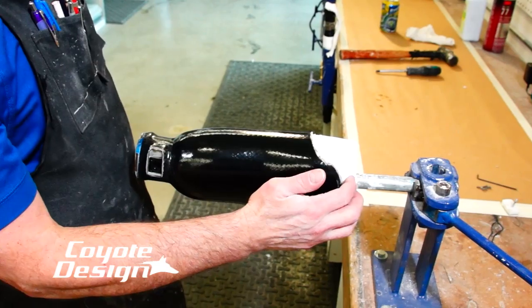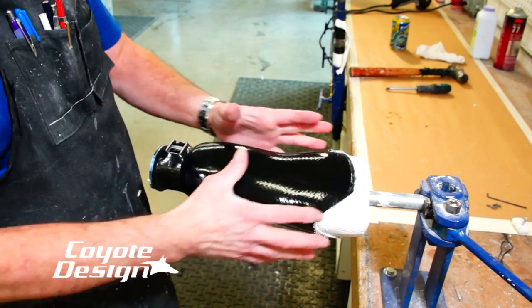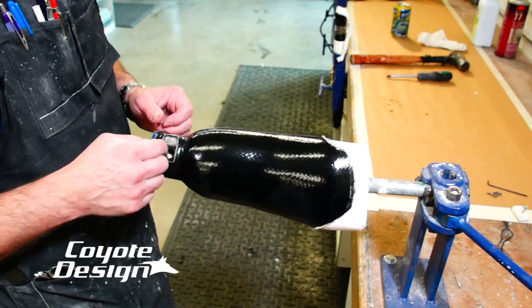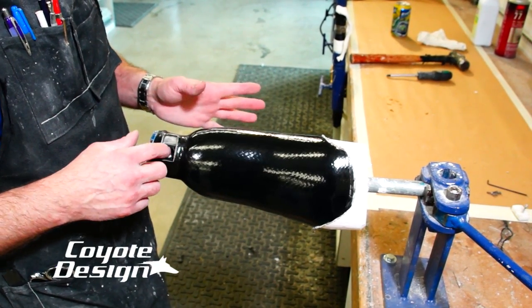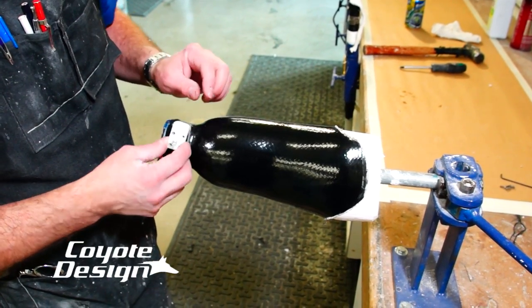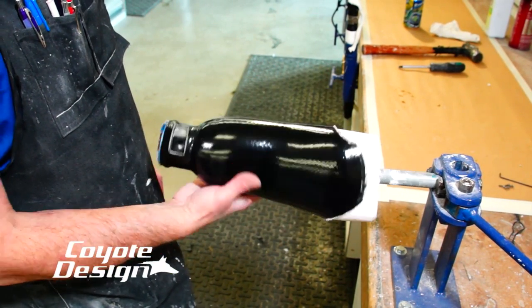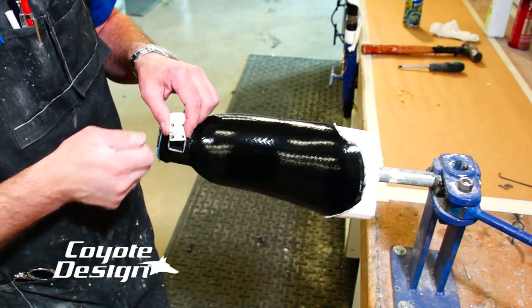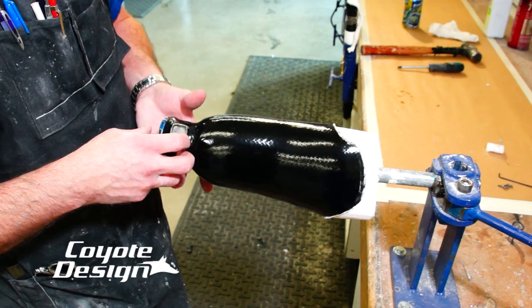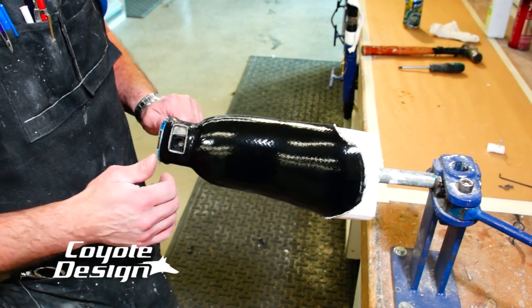That's another reason why I went through the steps that I did — cutting the top, getting my plate opened, and opening this up here. Now that I've still got a cast in it, I can put it in my pipe vise and work on it. If you were to chip this out or take your cast out of your socket, it's a lot harder to work on to get your tooling pieces out. This tooling piece, for example, isn't the easiest in the world to get out — it comes out easy, but it is four-sided and has a deep edge, so you know when you laminate you're going to have a bit of a fight. It's a lot easier to work with it still on your cast so you have a way of hanging on to it, can get your vise grip on, and take a hammer and tap on it. If it was just a socket alone, it's a lot harder to manipulate. I like having my cast and everything in one unit for right now — and now I feel like I'm ready to pull it.